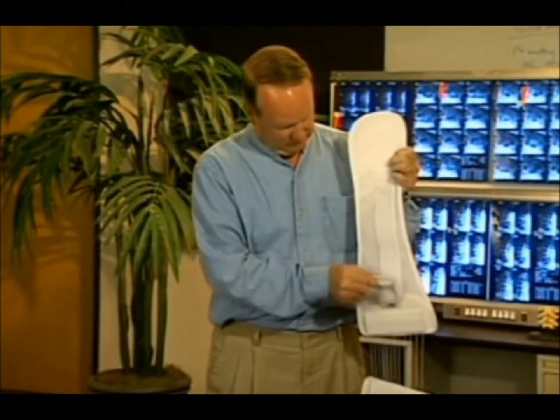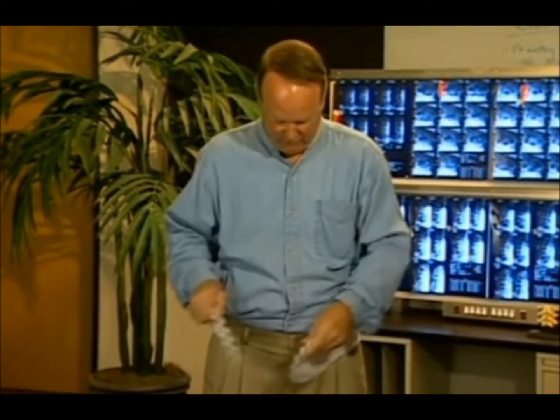Place the handle as close to the pulley system as possible. Stand and hold the product by the side panels and place it around your back. It may help if you move the brace back and forth slightly to get it centered.